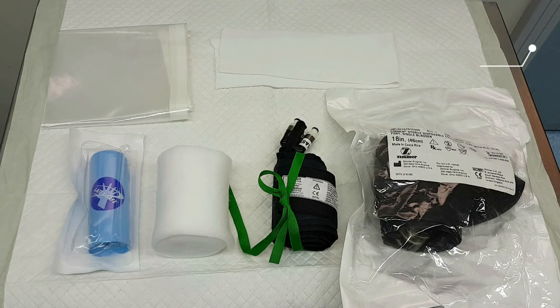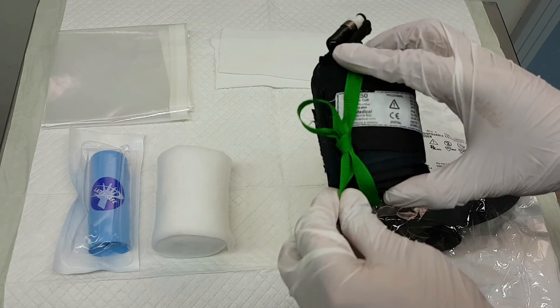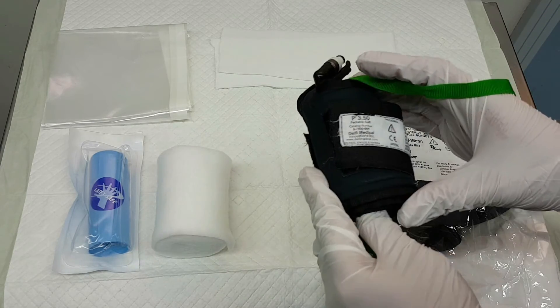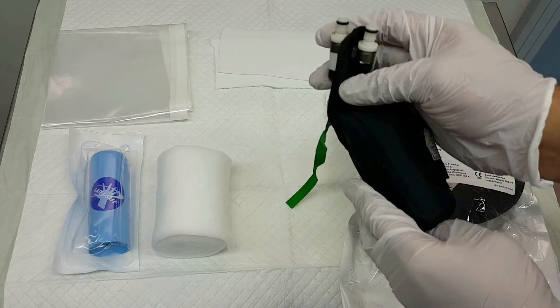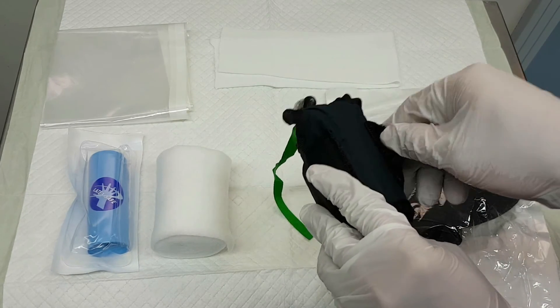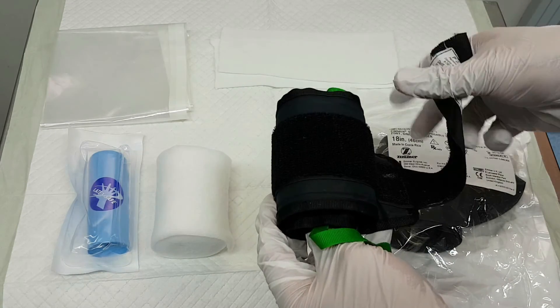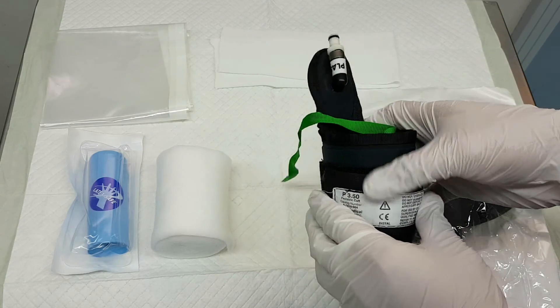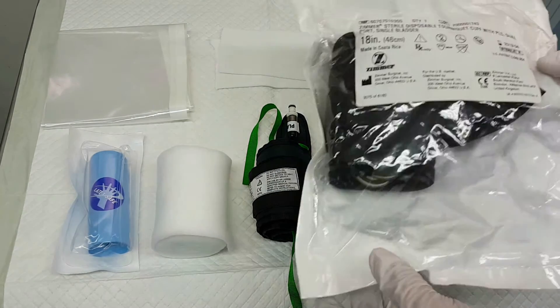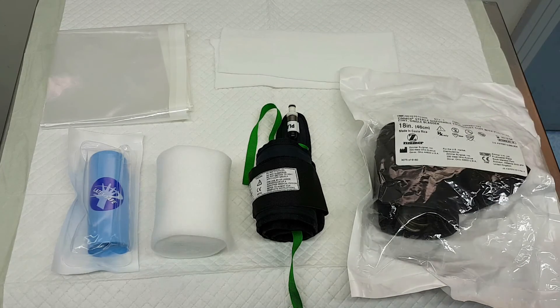Then finally hit add. On the table are the required materials for the application of the tourniquet cuff. The tourniquet size should be half of the limb diameter, and the length of the cuff should have at least three inches but not more than six inches of bladder overlap on the limb. Inspect the o-rings for cracks, leaks, and other damage. If the tourniquet site is close to the surgical incision, it is recommended to use a sterile single-use cuff instead.